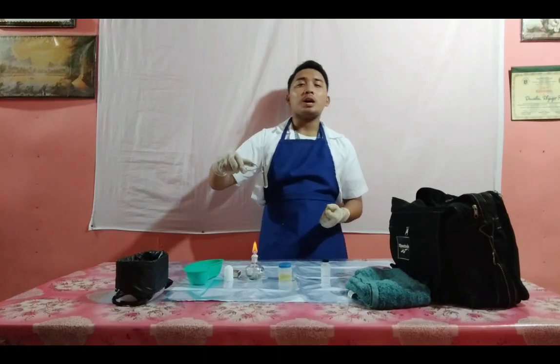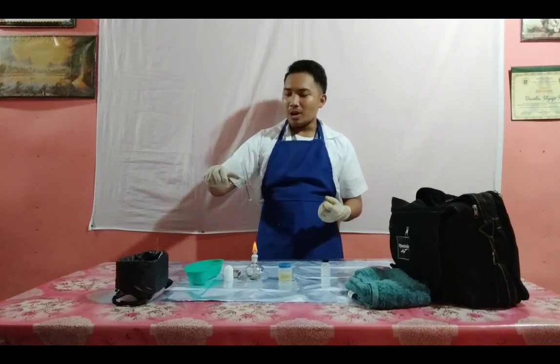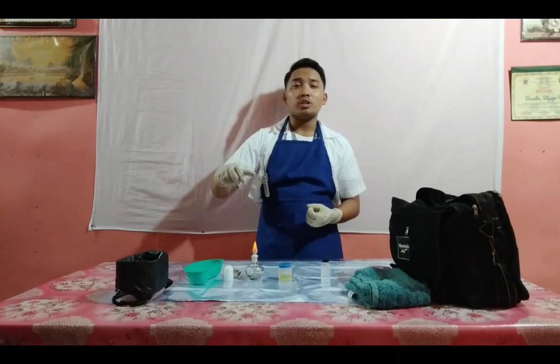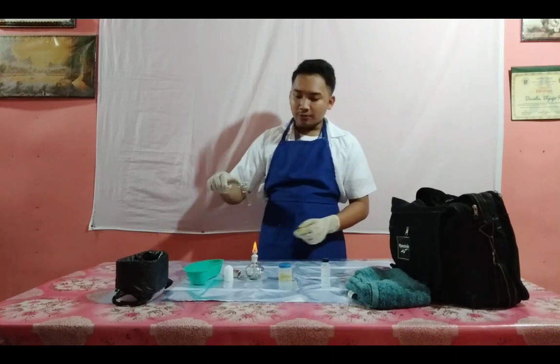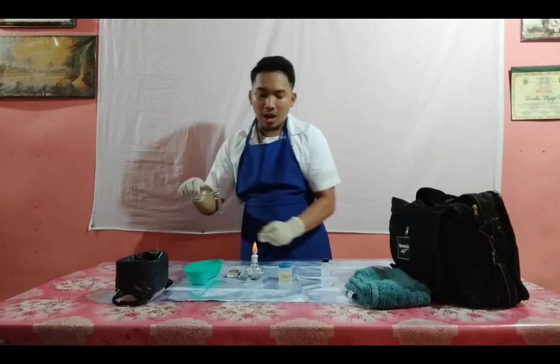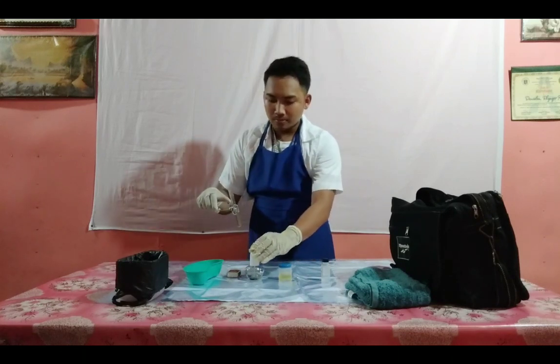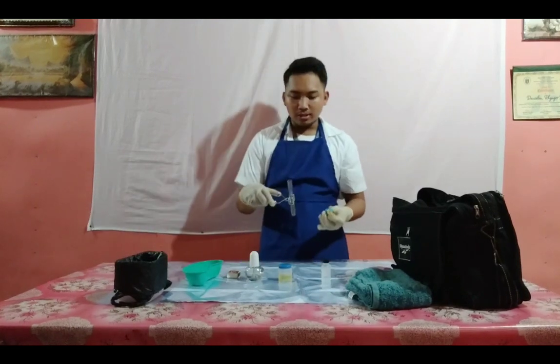Now do aftercare of the equipment. Clean and wash the droppers, test tube and test tube holder using soap and water. But don't forget to turn off the fire from the alcohol lamp to prevent any accident. We'll now wash these equipments.